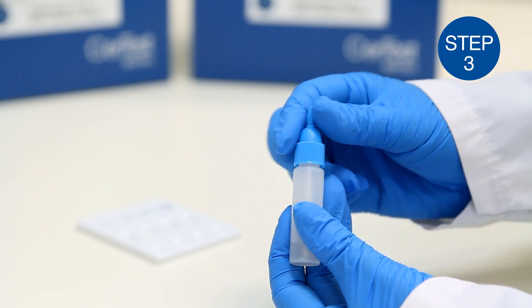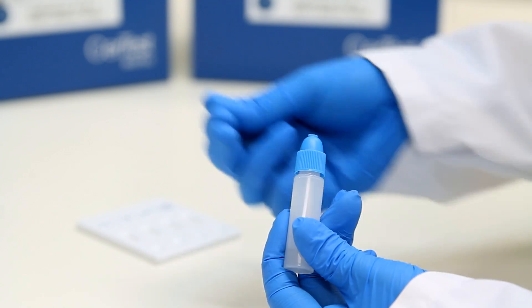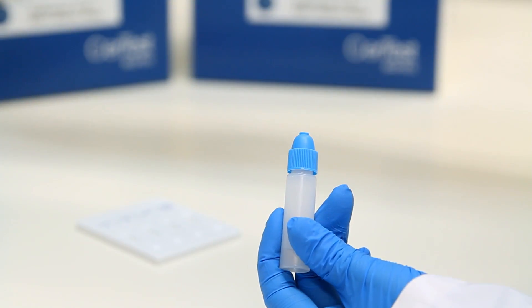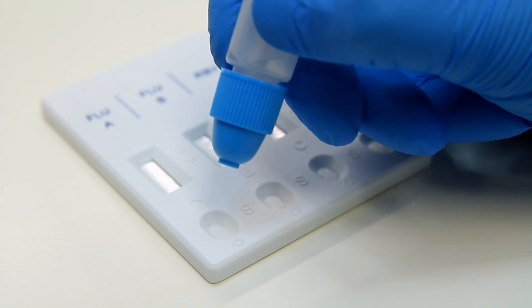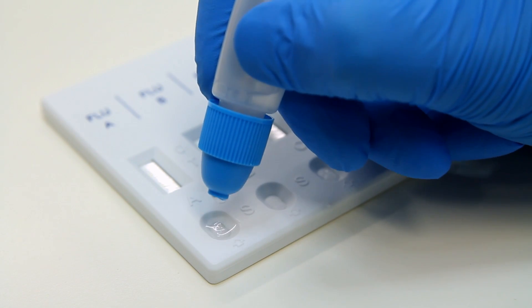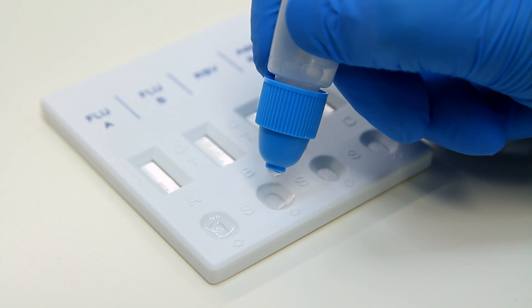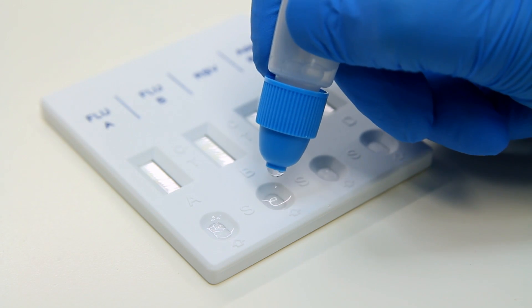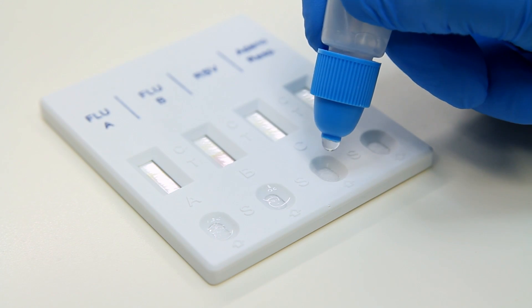Step 3: Take the collection tube and break the end of the cap. Using the same tube, dispense 4 drops in each circular window marked with letters A, B, C and D.